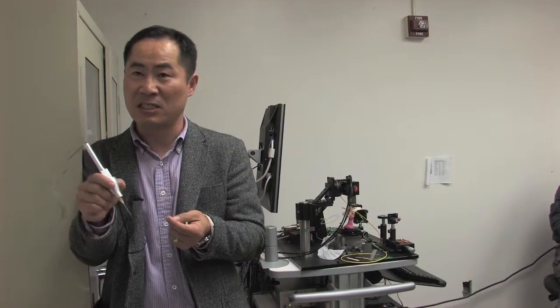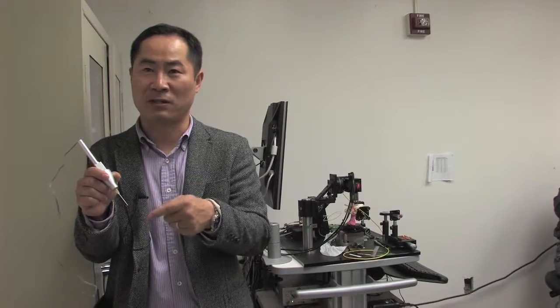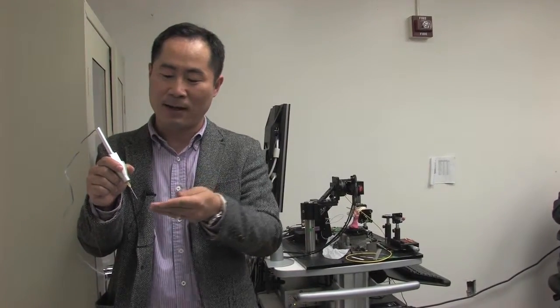Also, if you want to make an incision, we can tell this tool to go exactly, for example, 10 microns or 50 microns deep into the retinal tissue, and then tell the motor to basically maintain that distance as you move across the retinal surface. We call it a smart surgical tool.